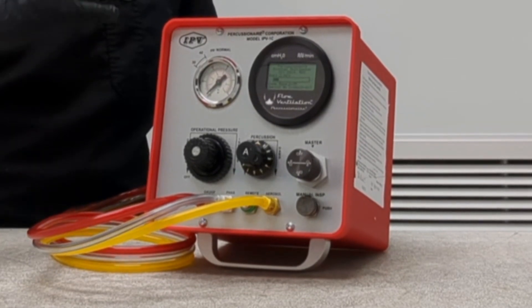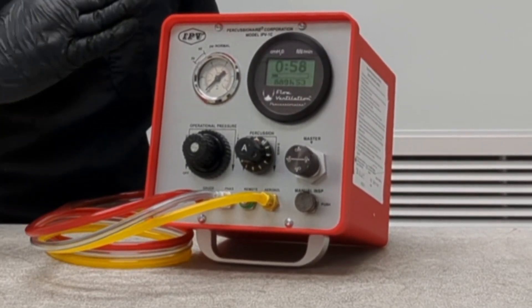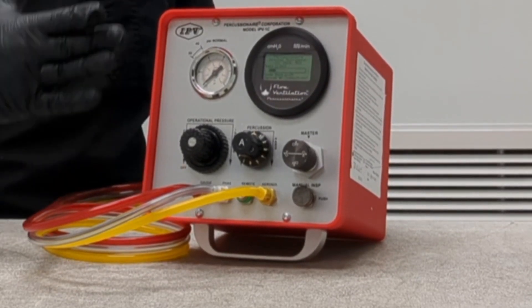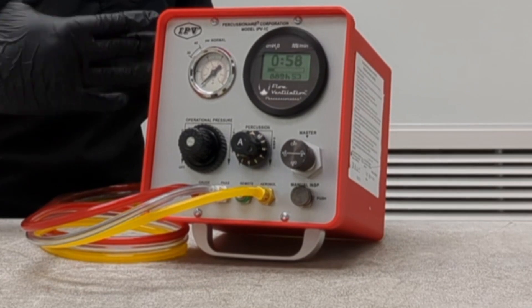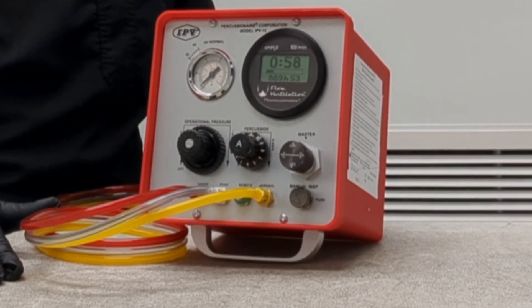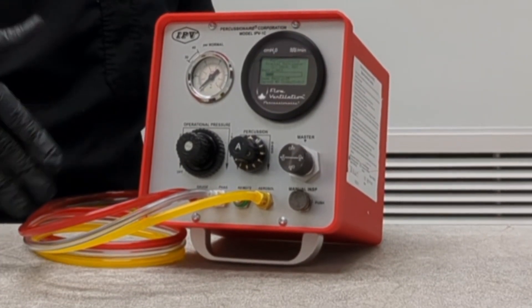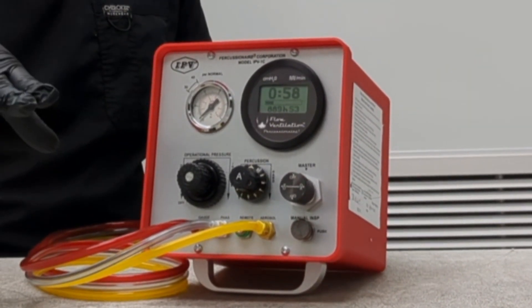Our expectation is within the first 24 to 48 hours you should see dramatic changes in your X-rays. Because this also ventilates your patient, it has an advantage over any airway clearance device out there — you're actually taking the work of breathing off your patient. This is the gold standard tool for your sickest patient populations.